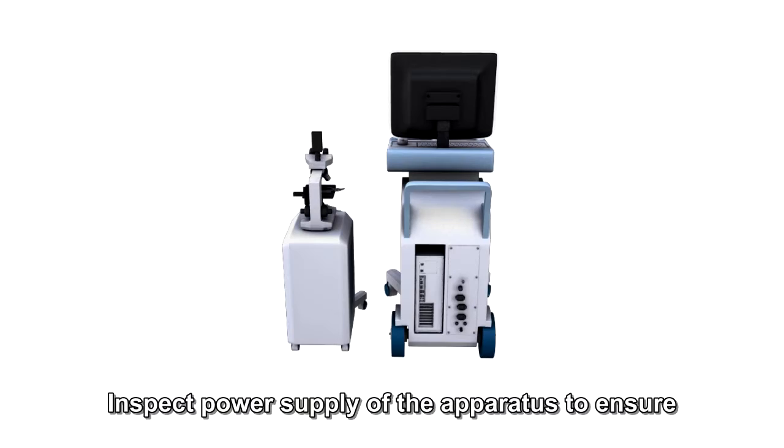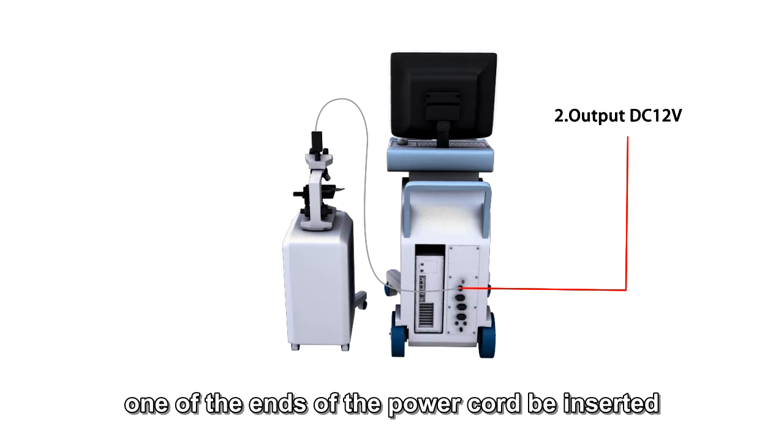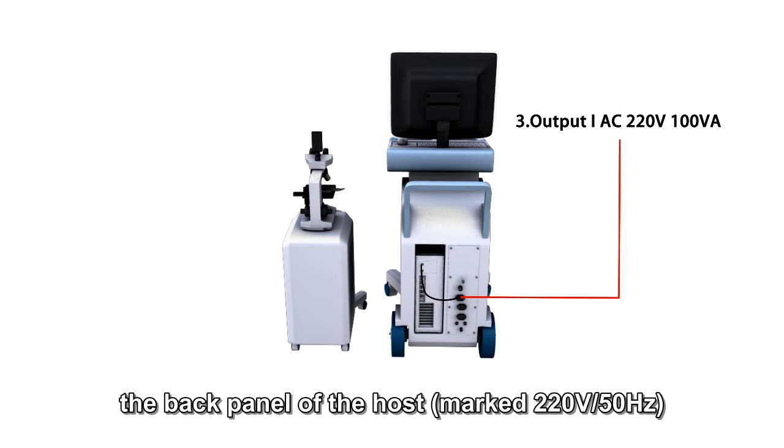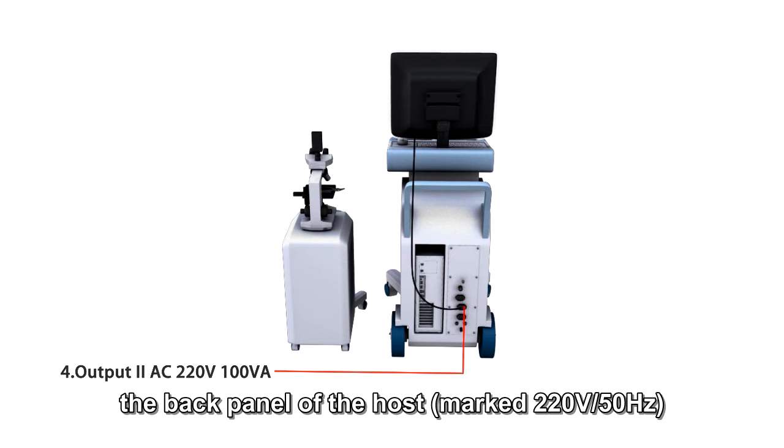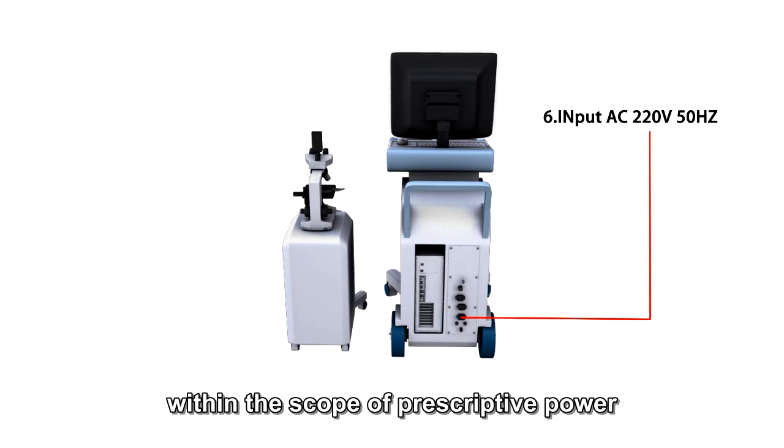Inspect the power supply of the apparatus to ensure that one end of the power cord is inserted into the back panel of the host, marked 220 volt 50 Hz, and the other end is connected with a special power wiring board within the scope of prescriptive power.